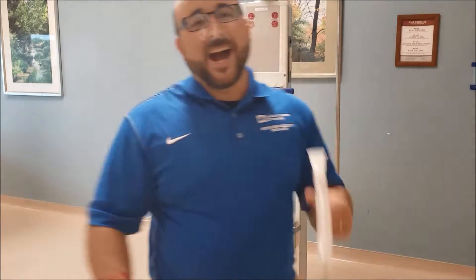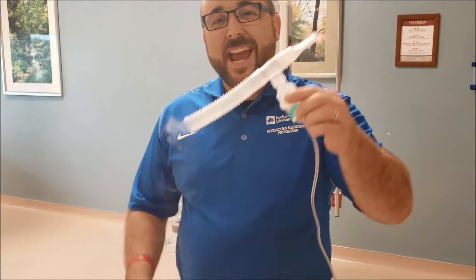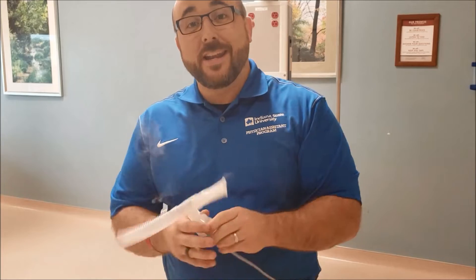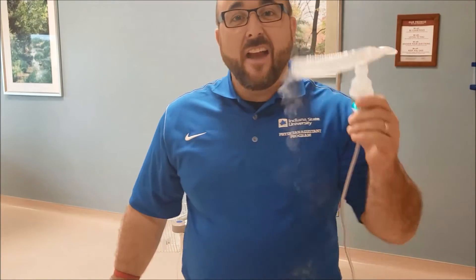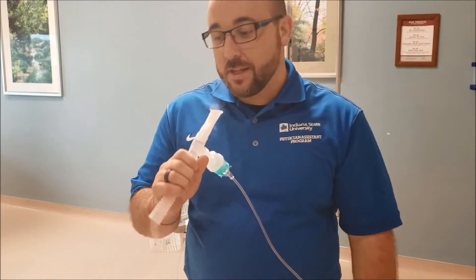What's up today, guys? Welcome back to the RT Clinic. Today I'm talking about delivering nebulized medication. Question is, have you ever seen anybody take their neb like this?